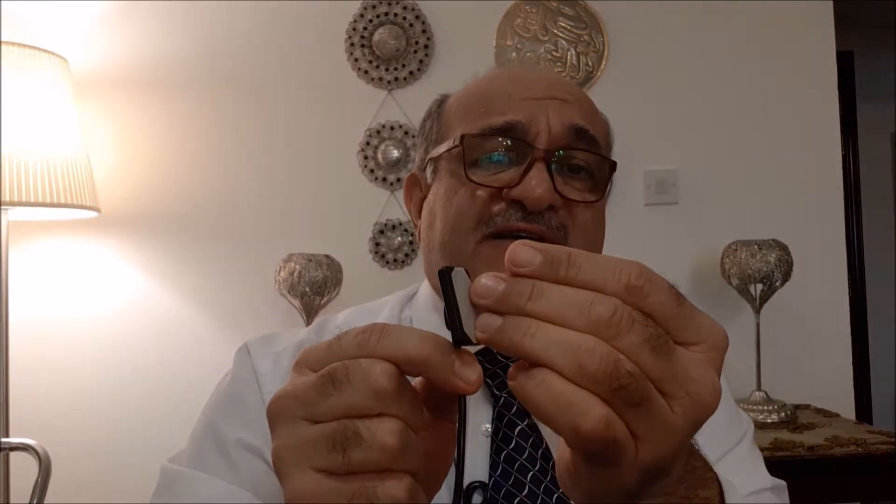When the photons reach the plastic cover, they will penetrate this plastic cover according to the quantity of the photons that have passed through the tooth — whether they have been completely allowed, completely prevented, or partially allowed to pass through the tooth. So the sensor is going to receive varying amounts of X-ray photons.